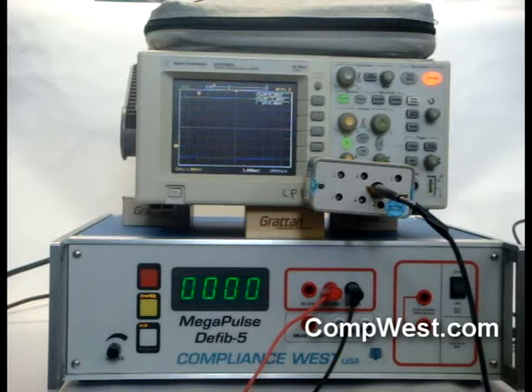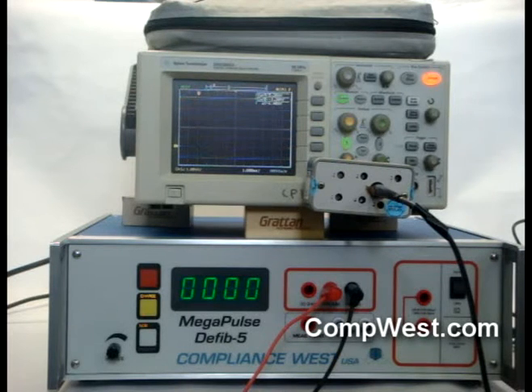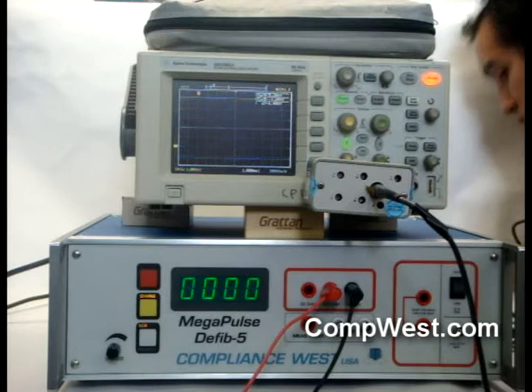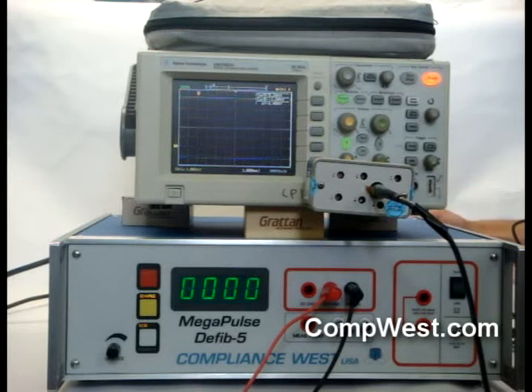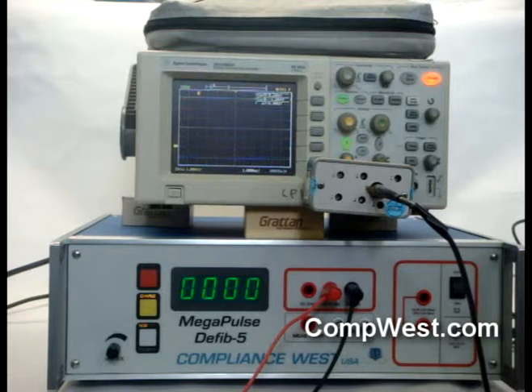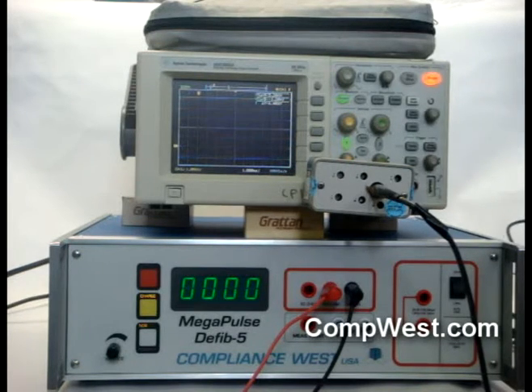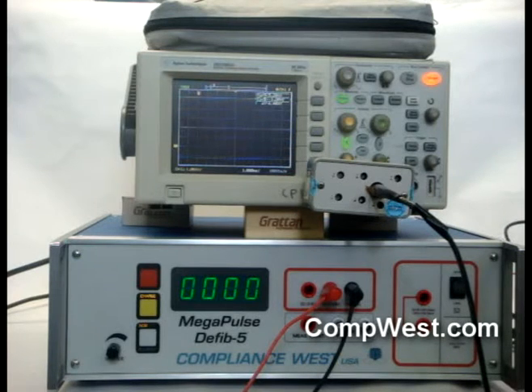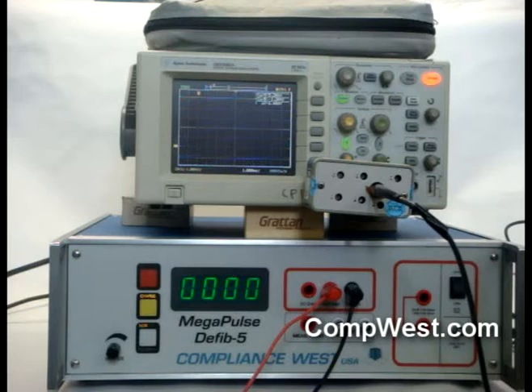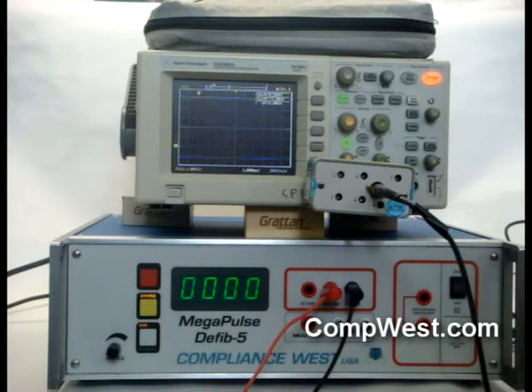The energy delivered to the 100 ohm resistor can be calculated using the energy port located on the back panel of the Defib 5, a digital oscilloscope capable of downloading data to a connected personal computer in an Excel format, and the Excel file we have provided for your use on our website. This video will cover the capture of the waveform, and a subsequent video will cover the Excel procedures needed to calculate the energy delivered to the 100 ohm resistor.